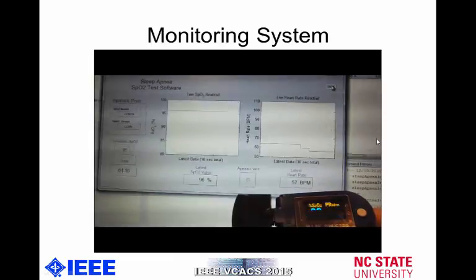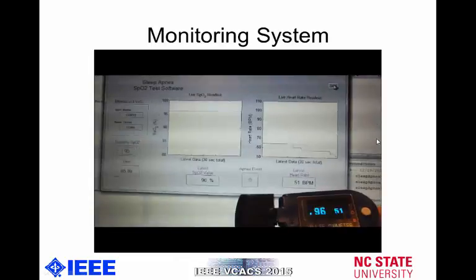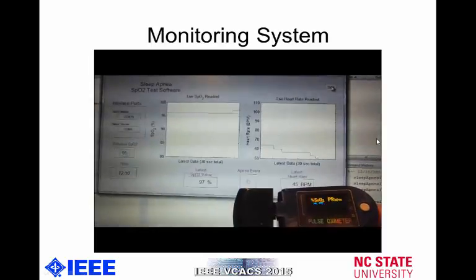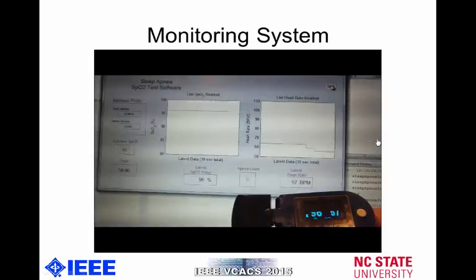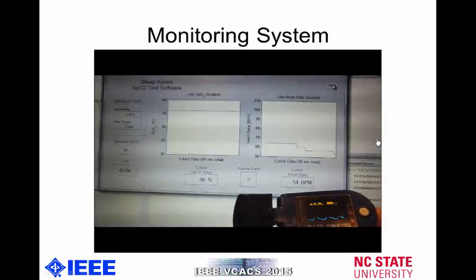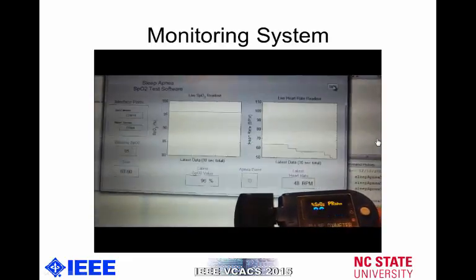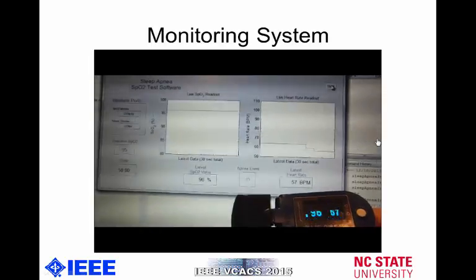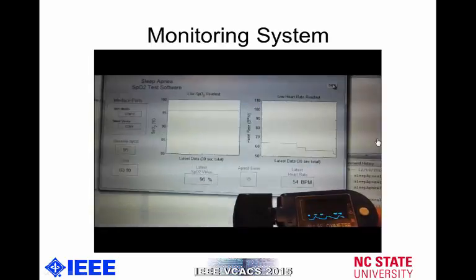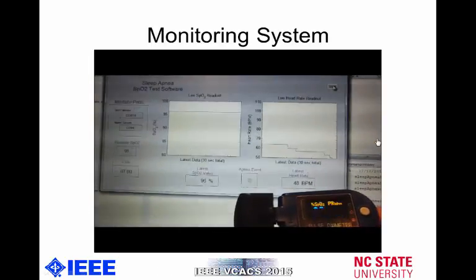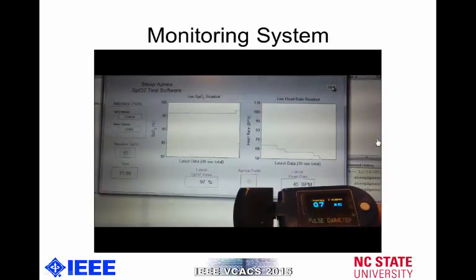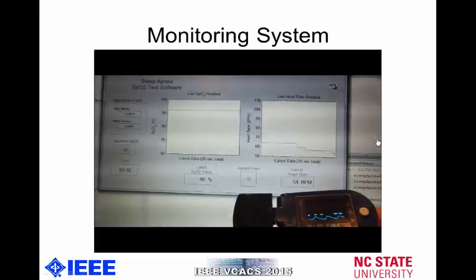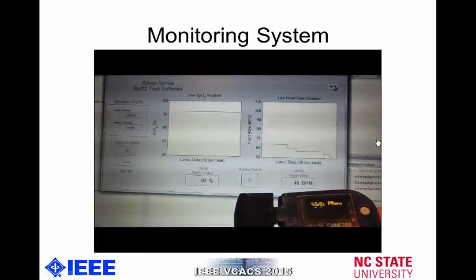Here we have a video of our GUI actually in action. The left plot shows the last 30 seconds of SpO2 data read in from the pulse oximeter, while the right graph shows 30 seconds of heart rate read in from the pulse oximeter — which it output both, so why not record both? You will note that the most recent pieces of data on both plots match the information displayed on the pulse oximeter in the bottom right, showing that our system was appropriately reading in the data. At the bottom center of the GUI, we have an apnea event button which shows when our SpO2 monitor detects that an apnea event has occurred. In this particular video, we're using an ideal patient with non-moving SpO2 data — a healthy patient not experiencing an apnea event — so you're not going to see that button light, but the functionality is there.